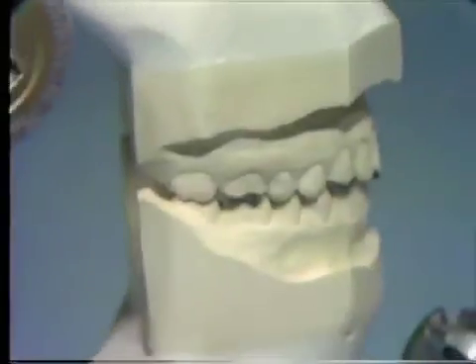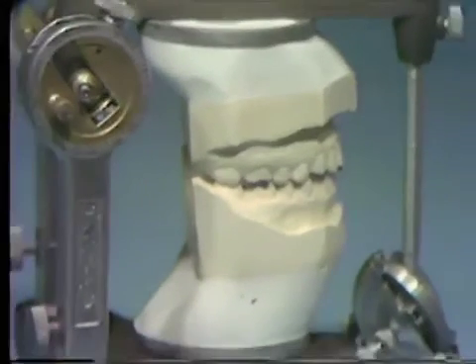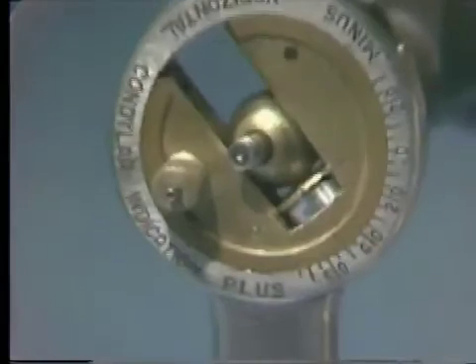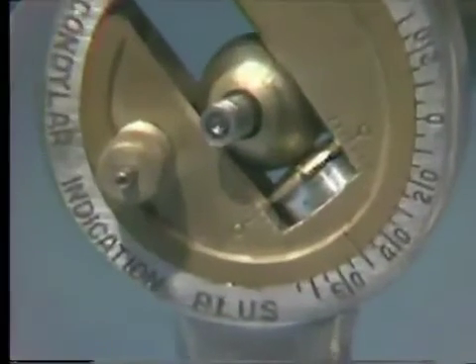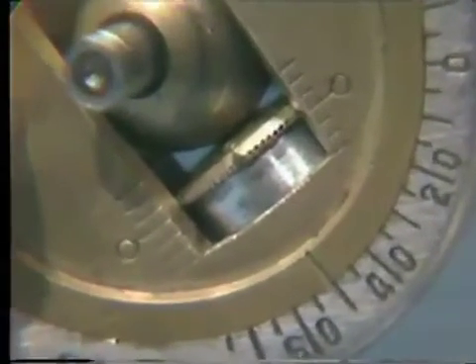The articulator can be set to simulate a slide in centric. With the spacer in position, the condylar stop should be aligned with the zero setting of the PR scale. The zero notch on the condylar stop should be aligned with the inclination indicating line.